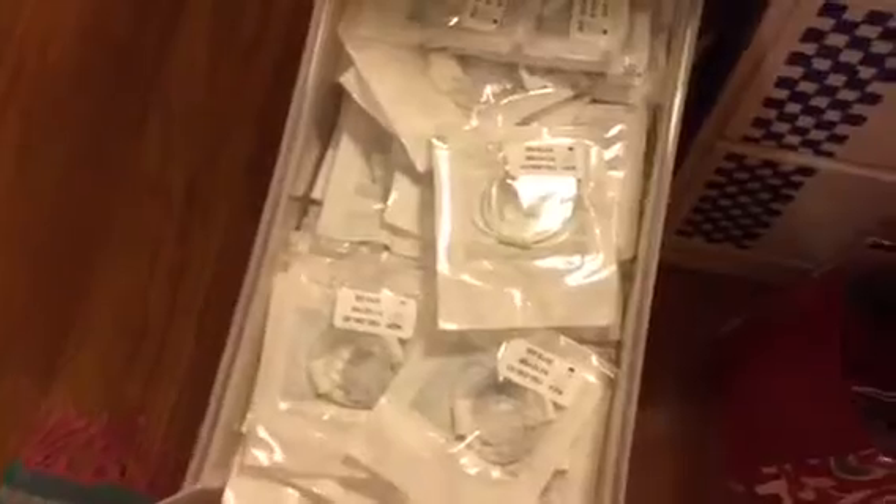The next drawer is just tubing. I don't really like keeping this drawer — once it gets full I'll dump it into the big tub. They send me so much tubing and I don't change it as much as I should, so I have tons of it, but I guess that's okay.